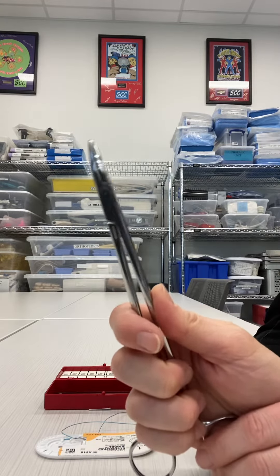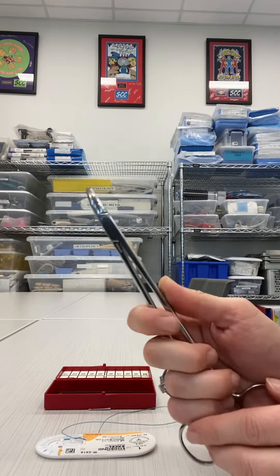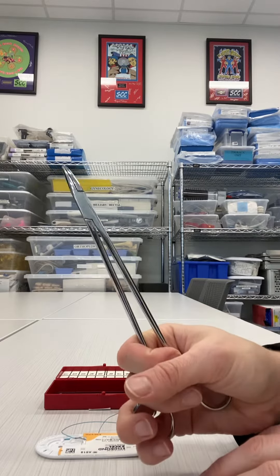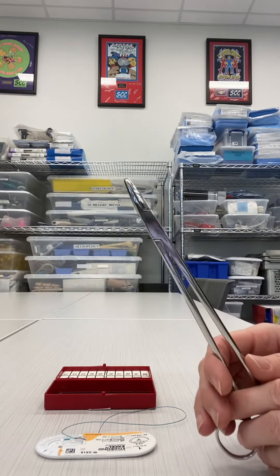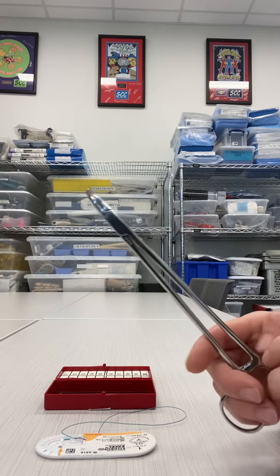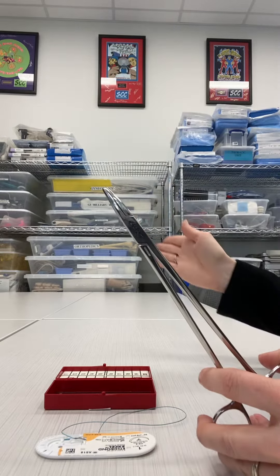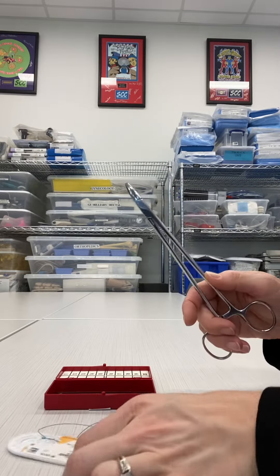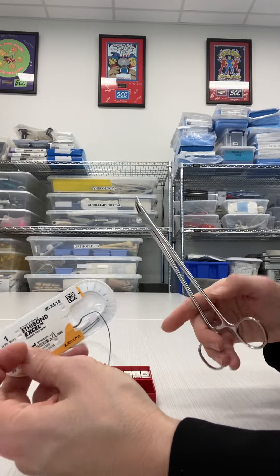If I am loading for a right-handed surgeon, I want the curve to be going away. So if I have this in my right hand, the curve is going towards the right, so it curves away from my midline before I attempt to load. Again, in a suture package, this is already positioned for a right-handed surgeon.